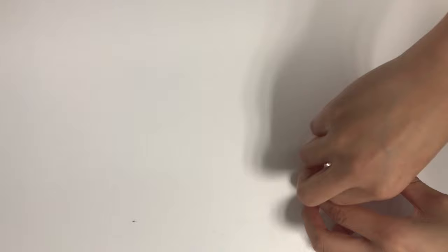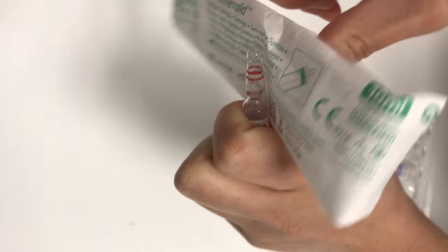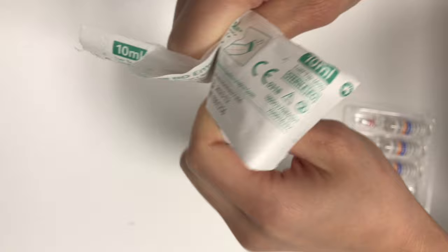If it's still difficult to do so, or if you're afraid to do that, you can grab a piece of clothing or maybe a piece of paper, any piece of paper just like this. Cover the head part, and if there's a marking it should be away from you, then give it a snap just like this.